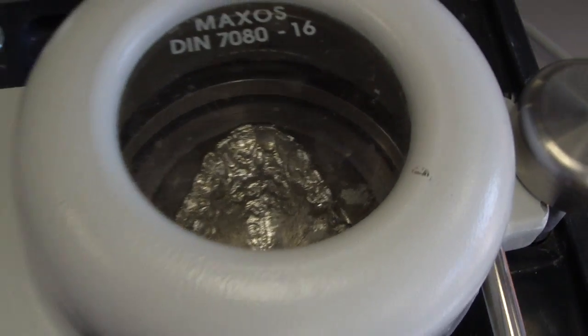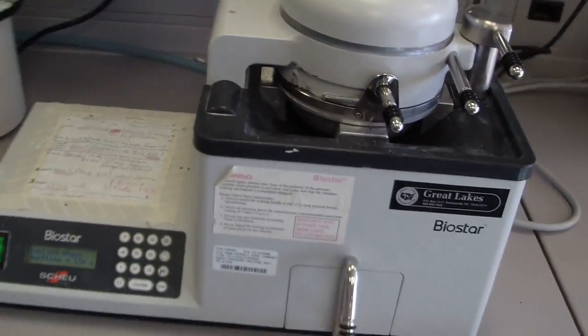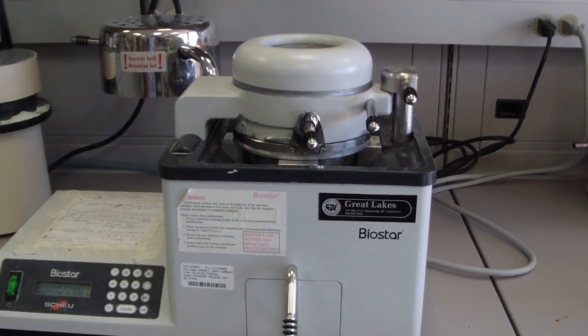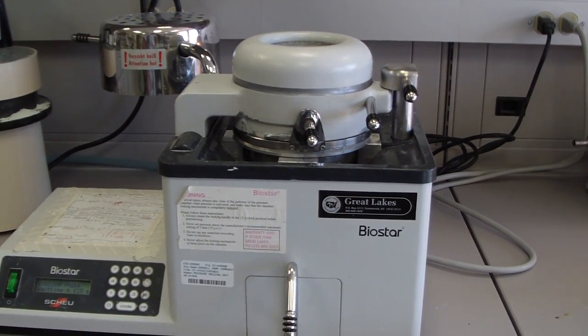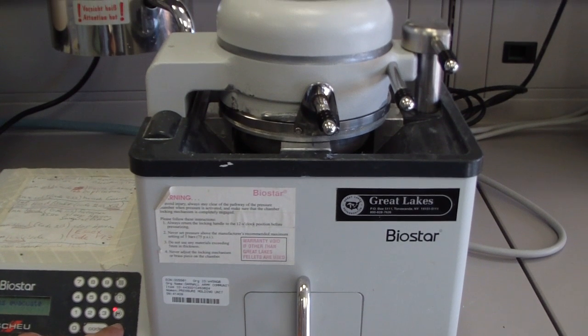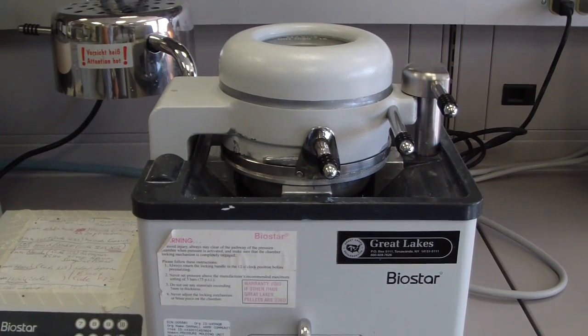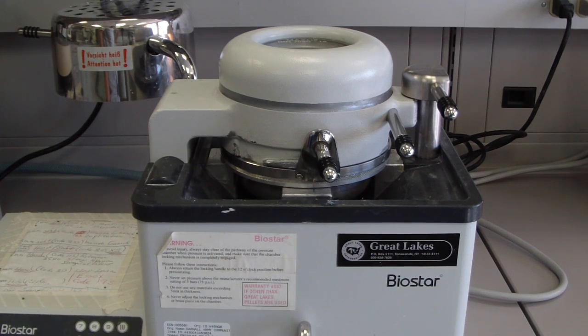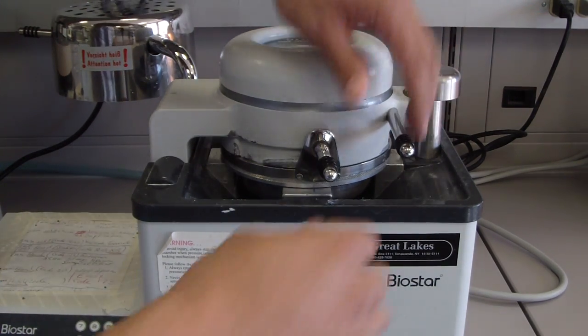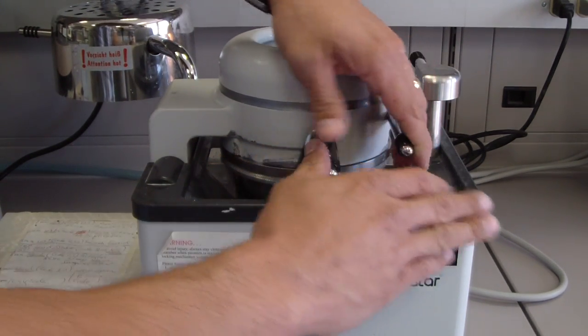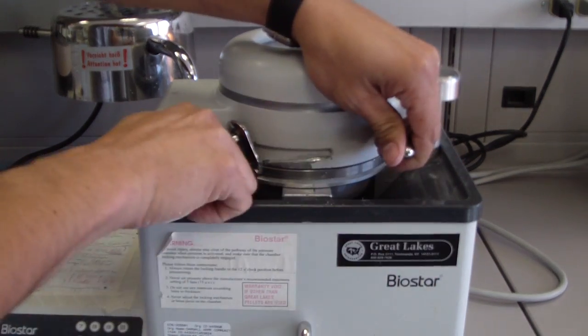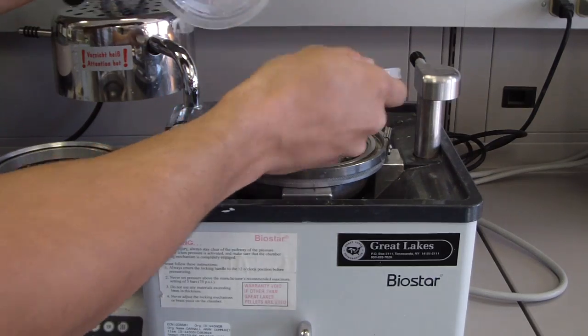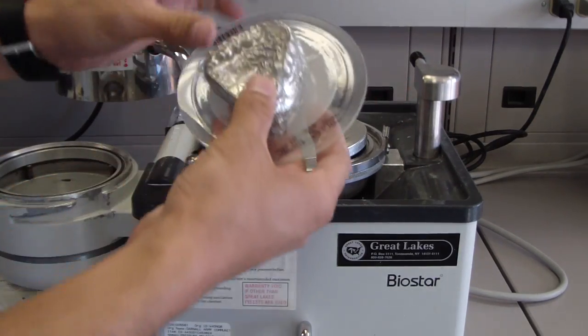One method of removing bubbles is increasing the plasticity of the material to let it form better under pressure. We're going to evacuate the chamber now. Insert the bottle, and there we have it.